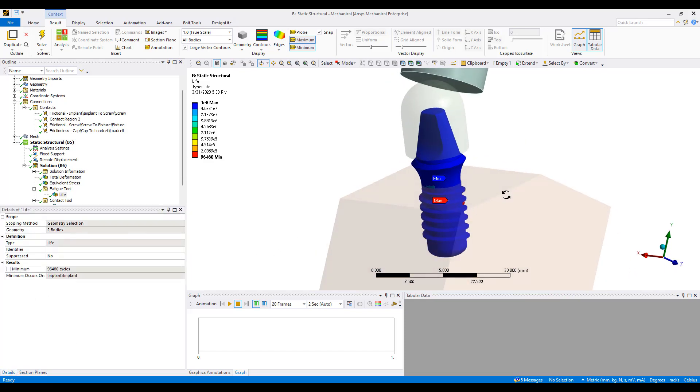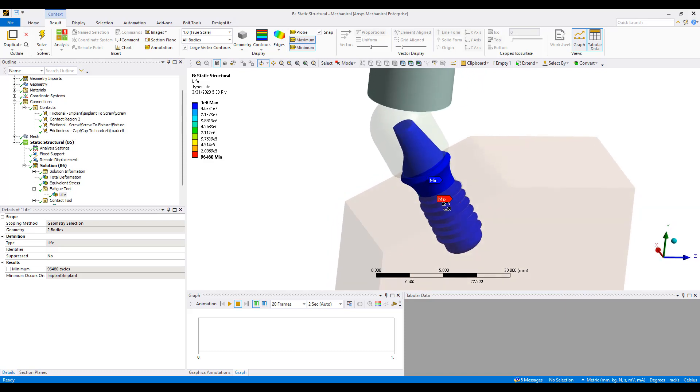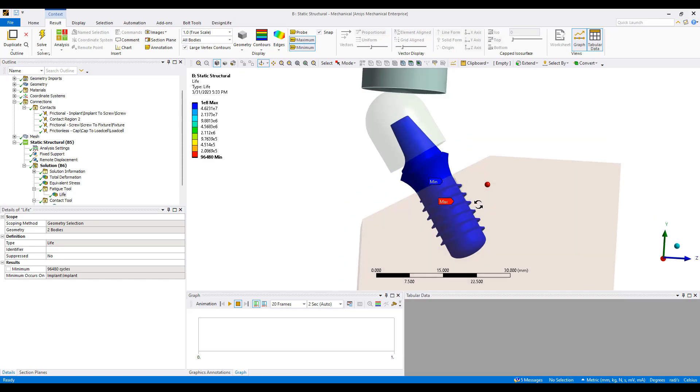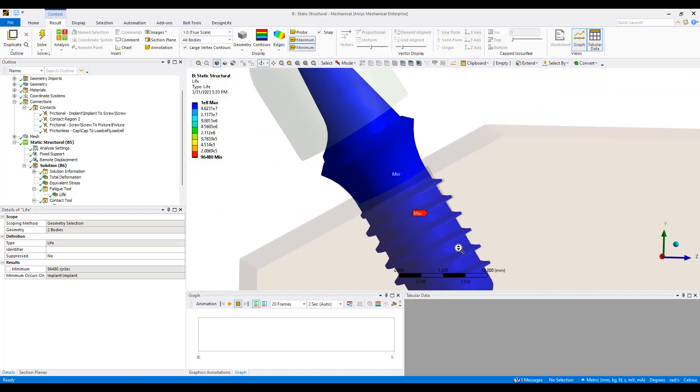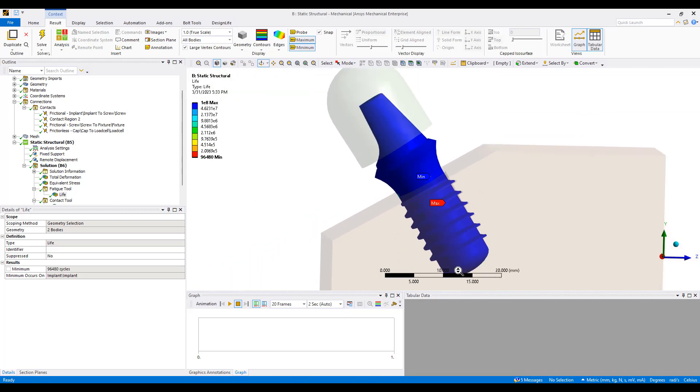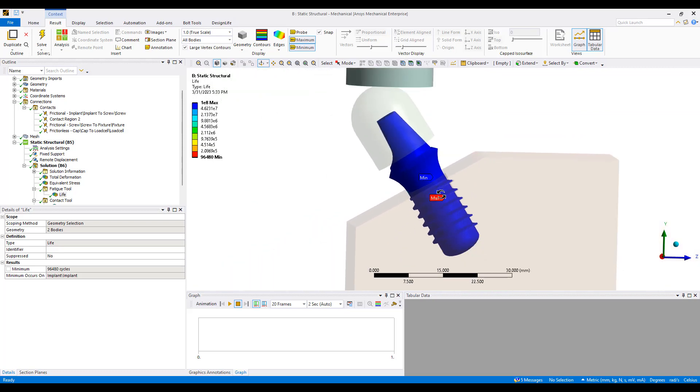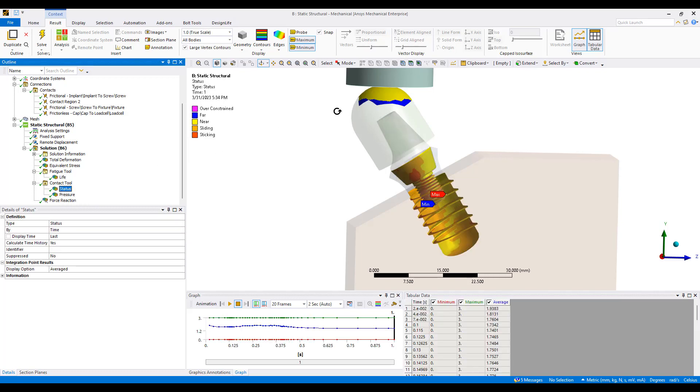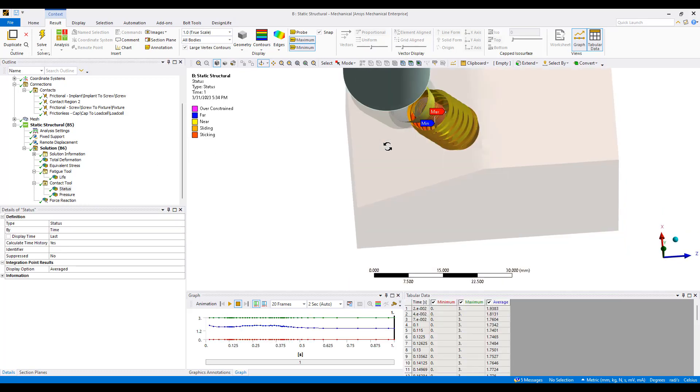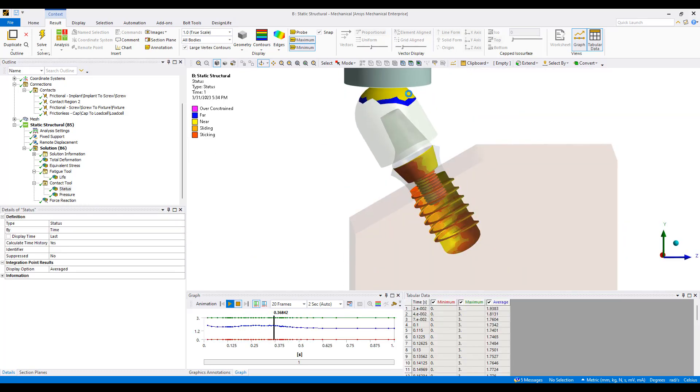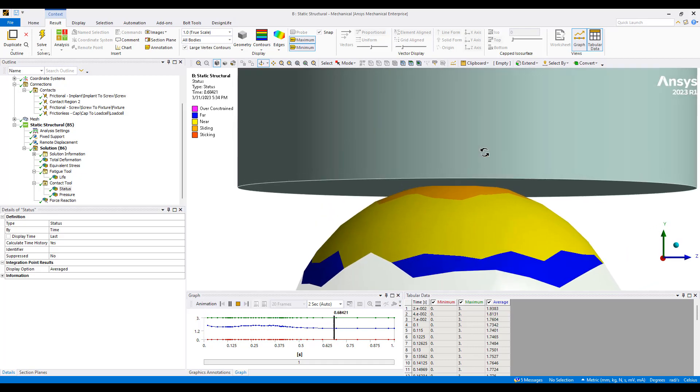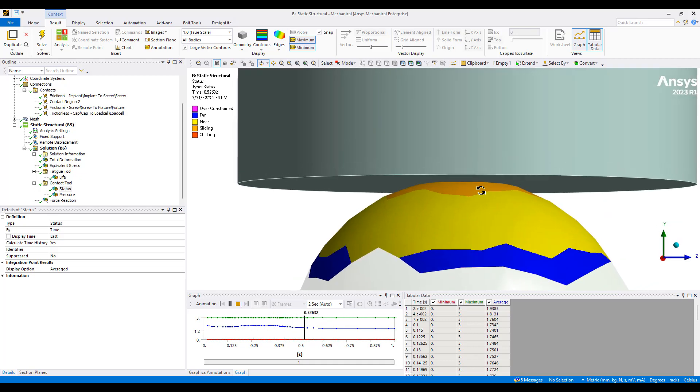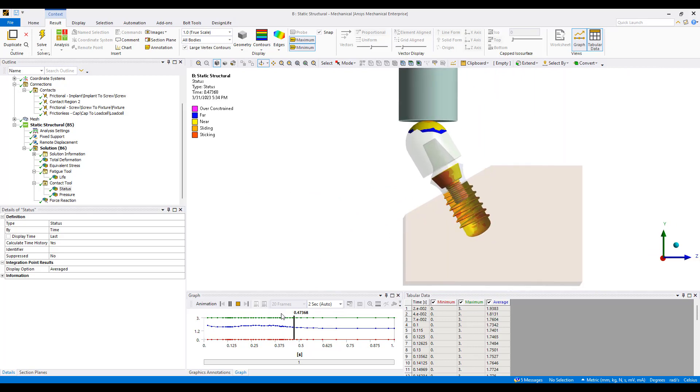This gives you an idea of the type of simulation we can do for a dental implant design. We can do this type of analysis for almost any type of orthopedic implants where you're required to undergo various types of testing regimens. What makes this simulation accurate is that we're allowing the test fixture to separate as it should from our test material. If I look at the contact up here, you will notice the contact area moving around. The contact location is sliding as a function of deformation. So this is true large deformation with non-linear contacts.